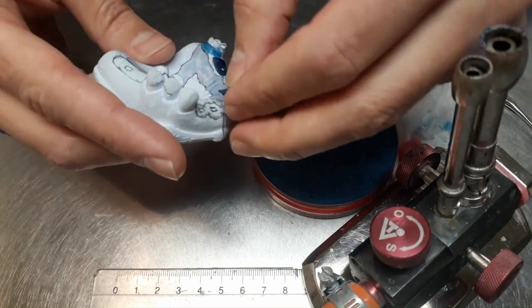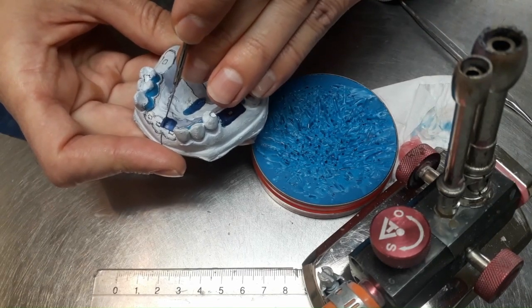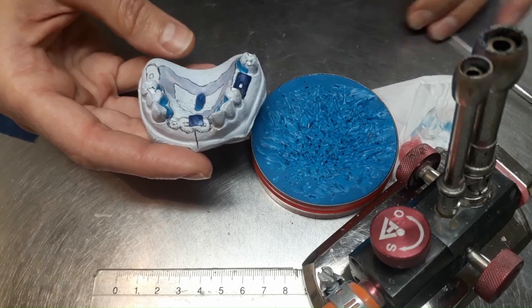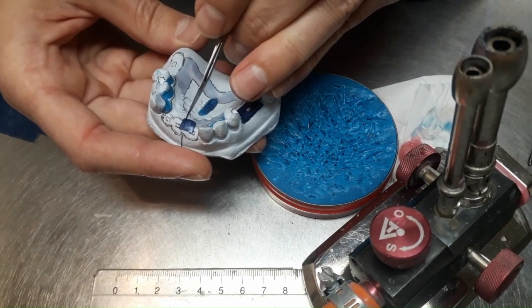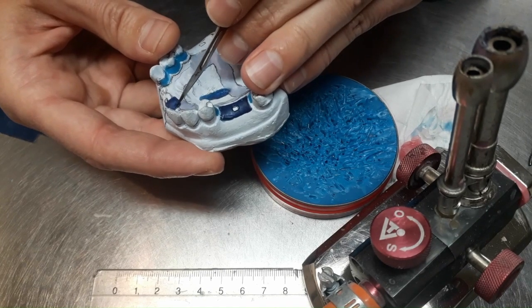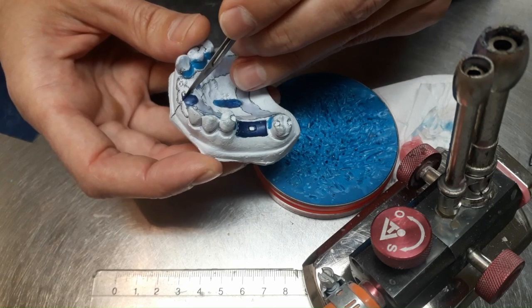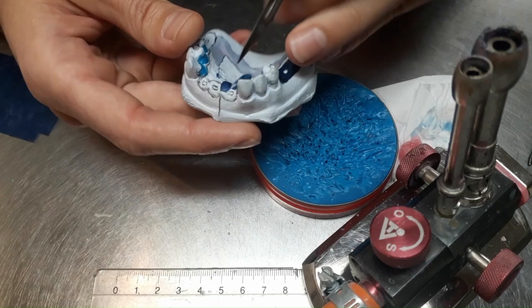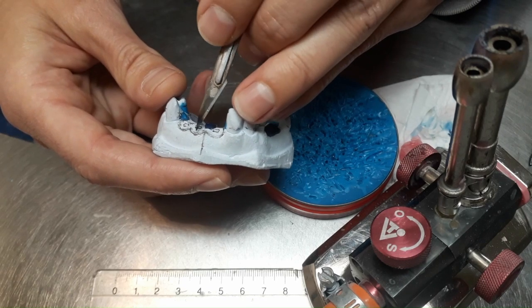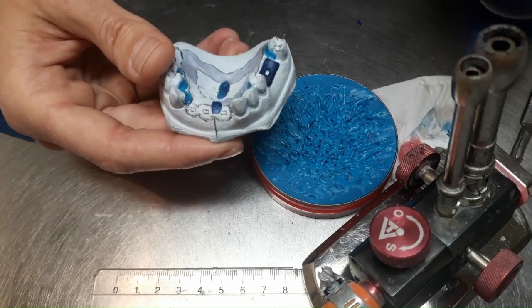See, the same thing is done on the papilla. Yeah, it's the retroincisive papilla. In the frontal zone, we will not place any foil because we want the saddle, the metal saddle, to sit on the gum. We don't want acrylic to touch the mucosa in the frontal region. So we don't want to place a foil. We don't want to create a distance between the metal and the gingiva. Because all those foils, you understand it well, they create distances in the final shape of the metal frame. You see, the metal frame goes till there, and we want it to touch the gingiva, except for that papilla, which is too sensitive. There we place a foil.